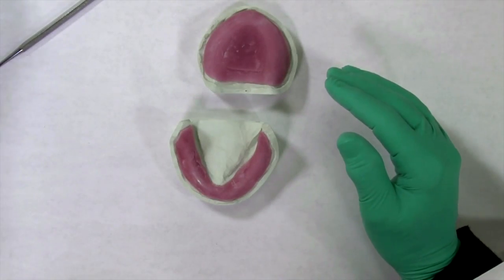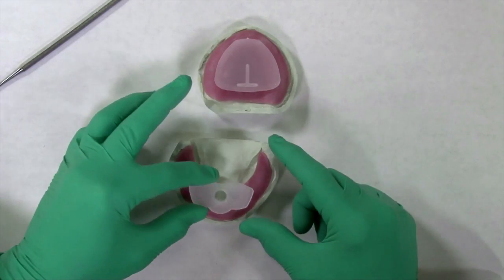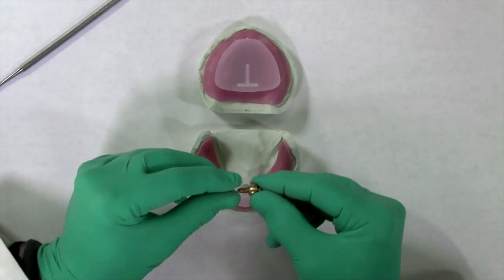For the edentulous patient, one striking plate will be used along with a large pin receiver, pivoting nut, and vertical pin.